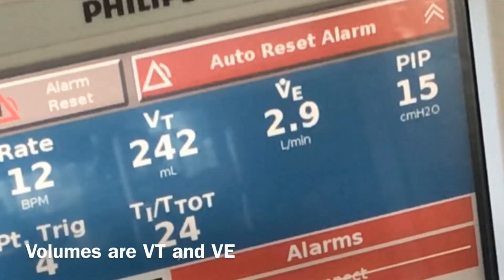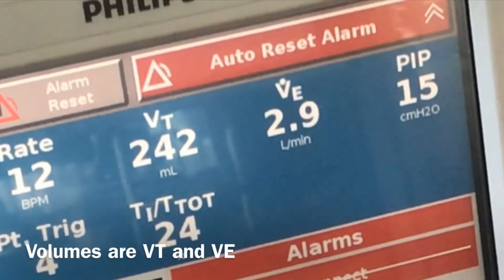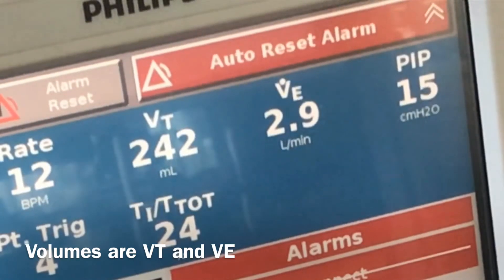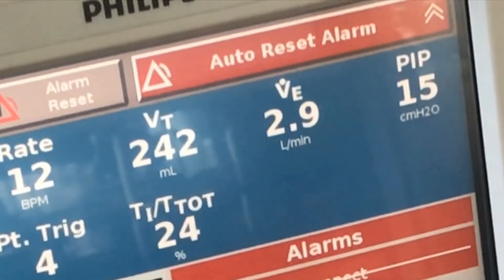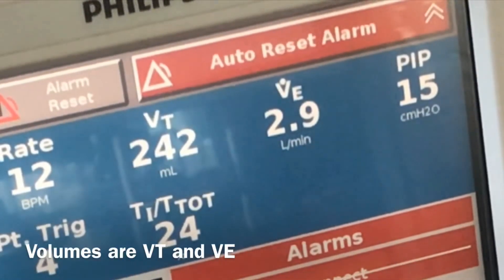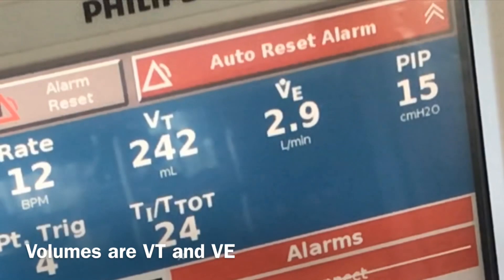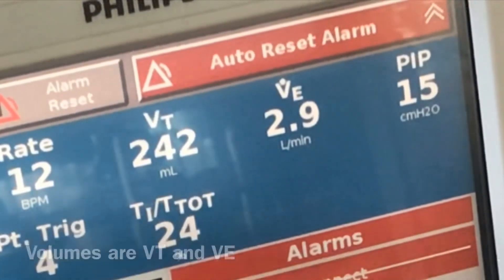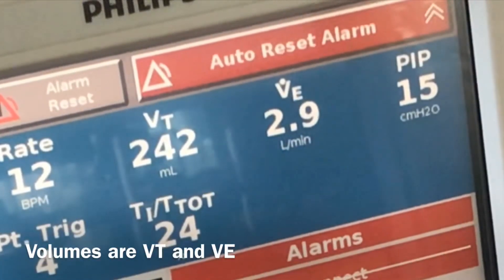After some breaths the volume measurement stabilized with a VT of 242 and a minute volume VE of 2.9 liters per minute.